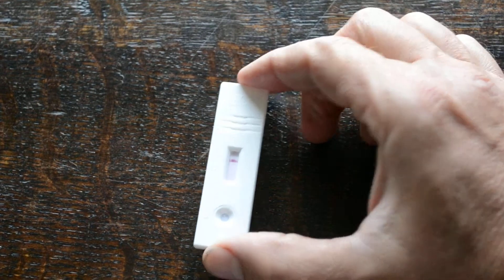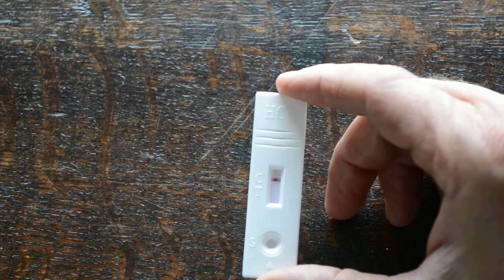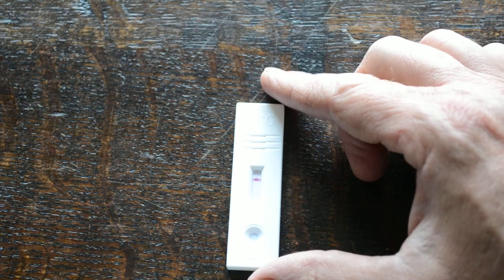Now if we show you the result on this — you've got a really nice easy to interpret dark band in the C line, and absolutely no test line forming at all. So this is a negative result. You should always wait for five minutes and time it properly. At the read time, you're looking for the presence of any test line. Even if it's very thin and faint, you should confirm the test again in 24 to 48 hours if there's any chance of pregnancy.